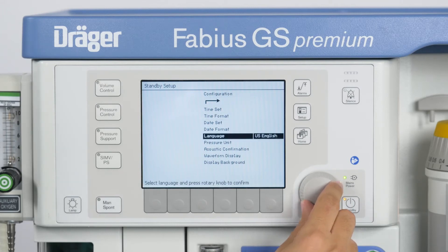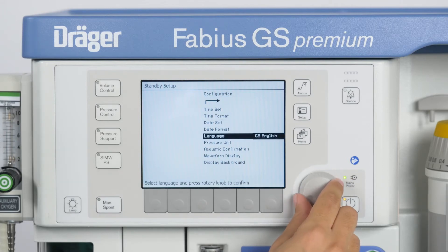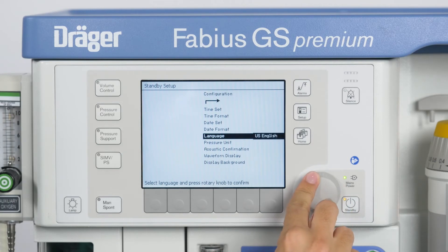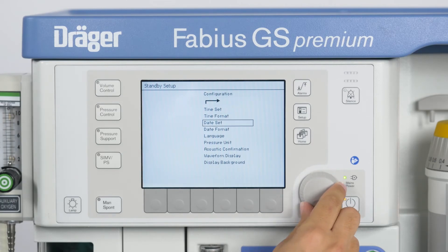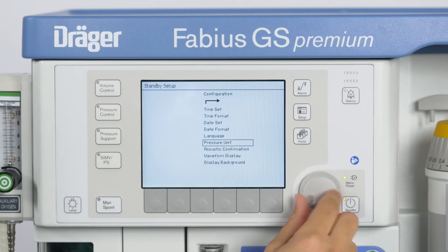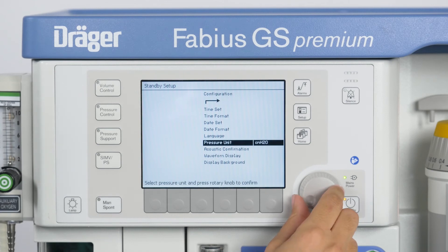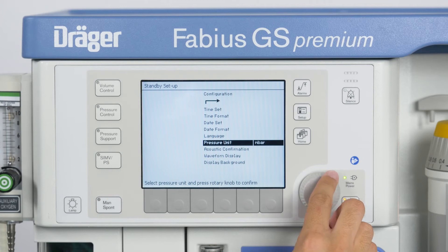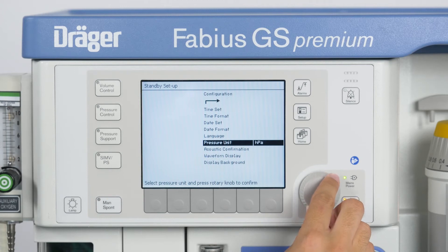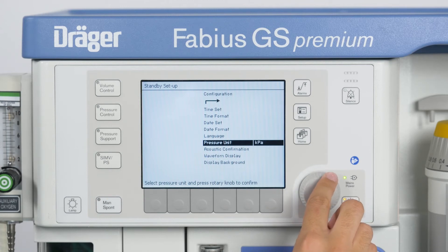Under Language, you are able to choose the language to be used for text display on the Anesthesia Machine screen. The menu item Pressure Unit offers you the chance to select the unit of pressure measurement. You can choose between centimeters of water, millibar, hectopascal, and kilopascal.